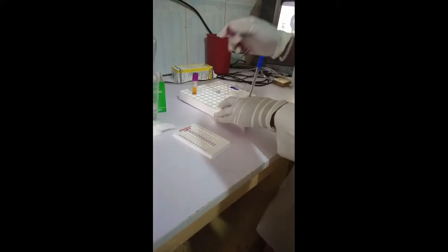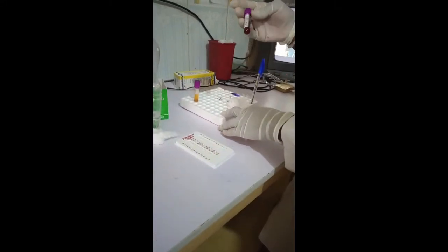We are performing a simple PCV test. All we will be needing is a blood sample from a patient.